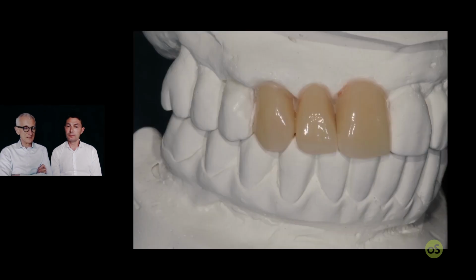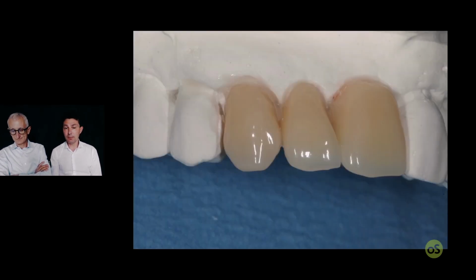So you mentioned once that you just grind out the shape of the tooth. You do not over prepare the stone, the plaster, right? So you do not make an extra. Yes. If you remove a lot of plaster, especially in the septum, it's possible to have a problem in the future when the doctor tries the shell in the mouth, because if you touch a lot of bone or very hard tissue, it's impossible to fit completely the restoration.